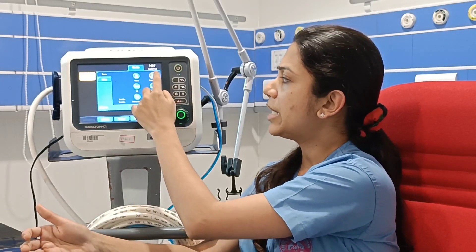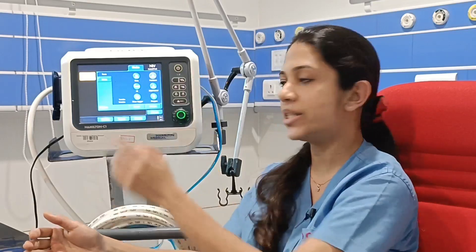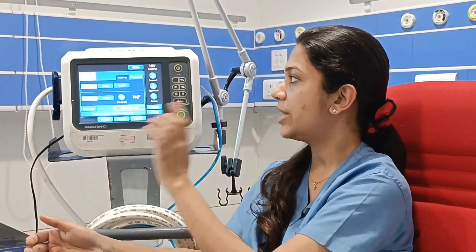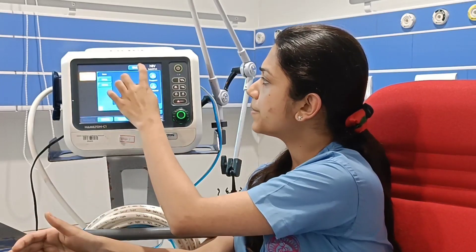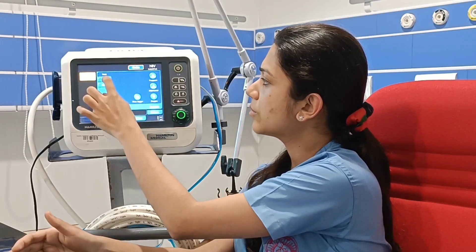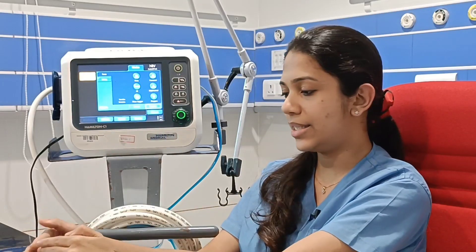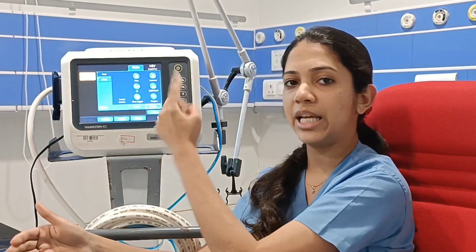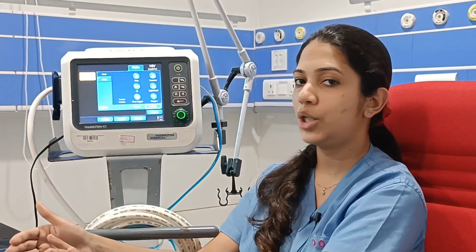In this mode, the pressure control mainly targets the inspiratory pressure. If we set pressure control at 20, that pressure will be given during inspiration. The PEEP is the positive end-expiratory pressure, which is given during expiration. So the pressure control is given during inspiration and the PEEP is given during expiration.